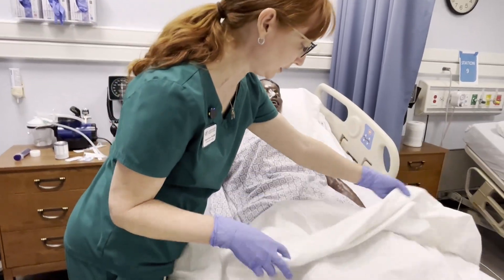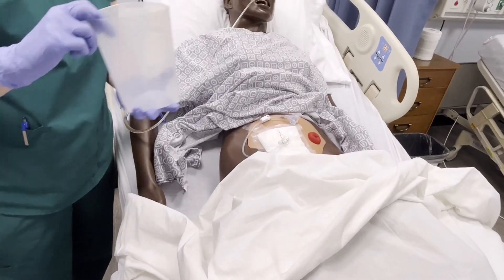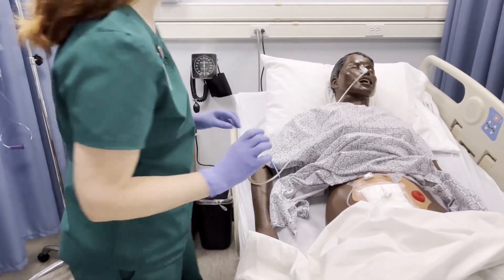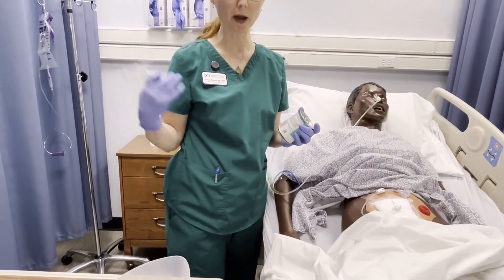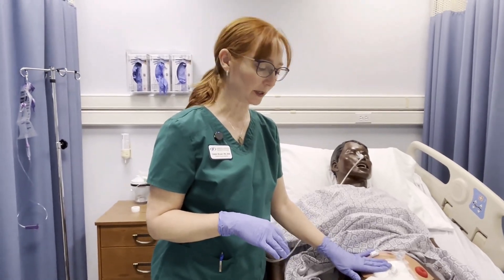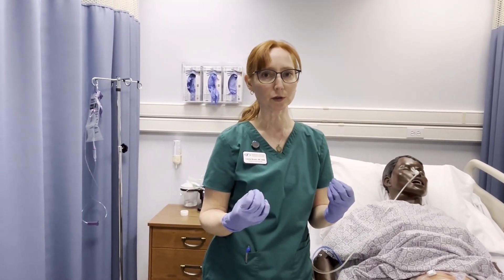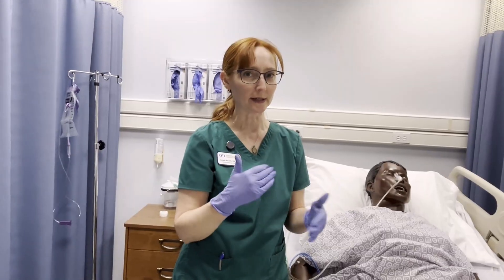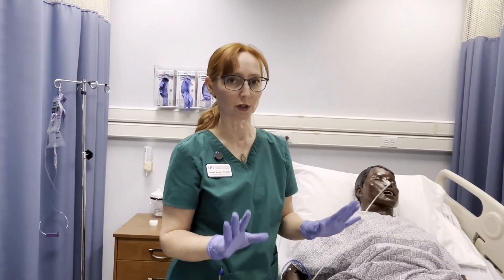If we're working with a patient with a gastrostomy tube, we need to get down to the tube and have a container of water and a syringe. We could do a bolus feed, hook them up to a continuous pump, or gravity feed. Because we know this tube is located in the stomach itself, it used to be practiced to check the pH level, but that's not standard practice anymore. It may still be on your NCLEX about checking pH and gastric residual, but it's not typical practice. For checkoff, I don't need you to check the pH level.